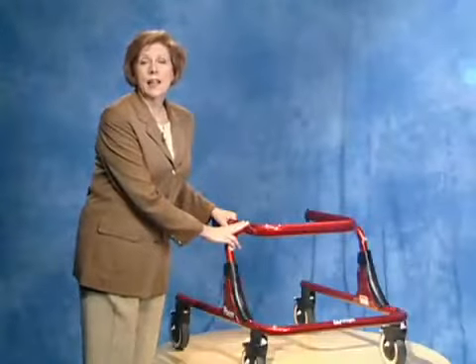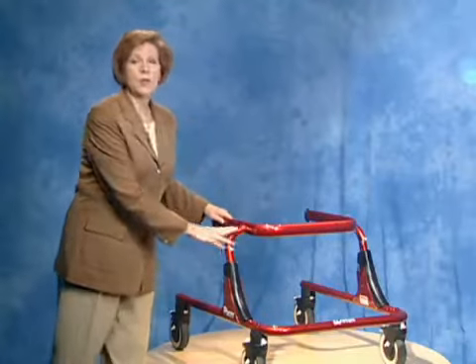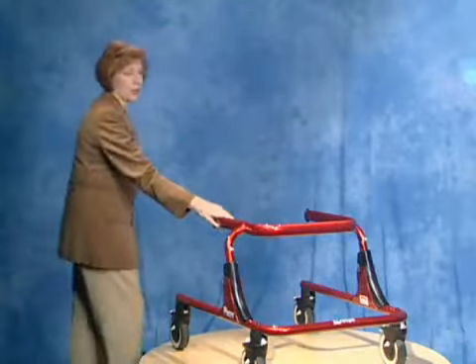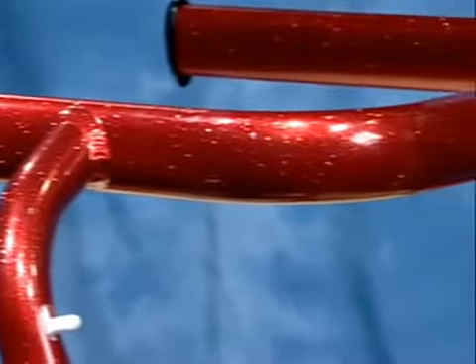The pacer frame is the skeleton to which all prompts are clamped. The whole purpose of the pacer is to promote mobility through prompt reduction. That's why there are no prompts permanently fixed. This top bar enables these clamps to be attached anywhere.